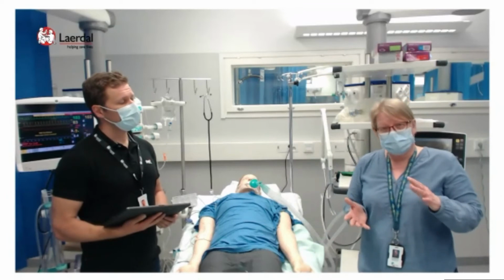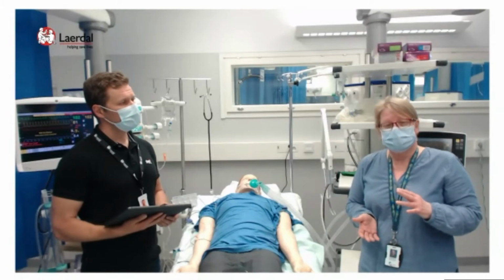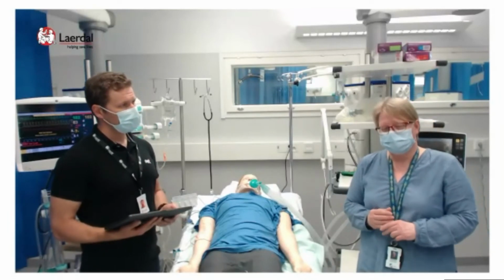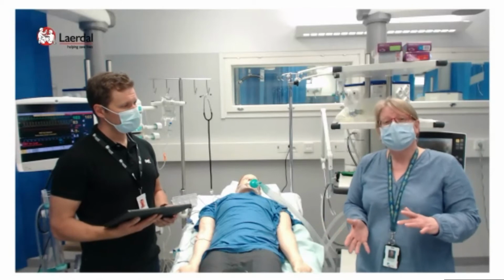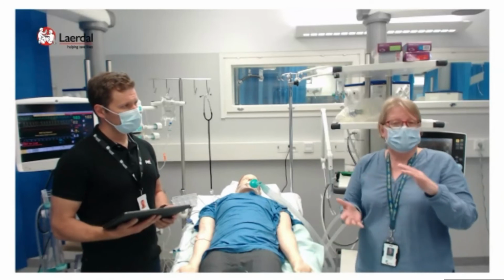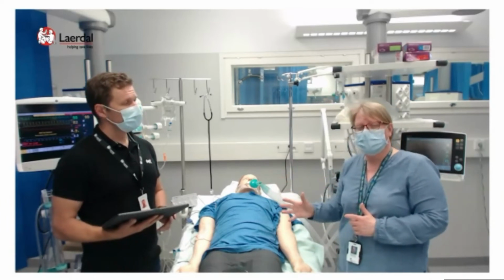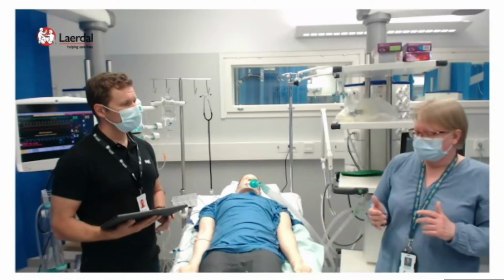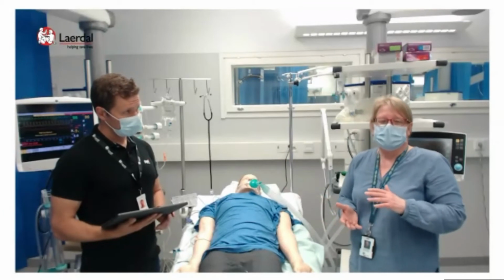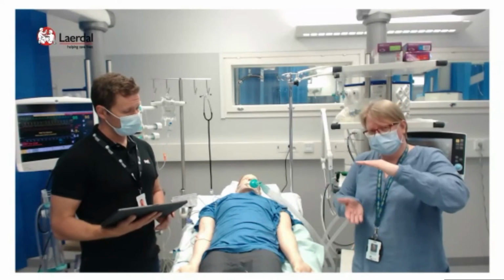And you can be sure about the minute ventilation in volume control. Tidal volume multiplied with frequency is what you get. With pressure control, you deliver pressure, and the tidal volume depends on the lung, the quality of the lung tissue, and the quality of the respiratory problem. So the pressure doesn't get up, so it doesn't hurt the lungs, but the tidal volume changes with time.